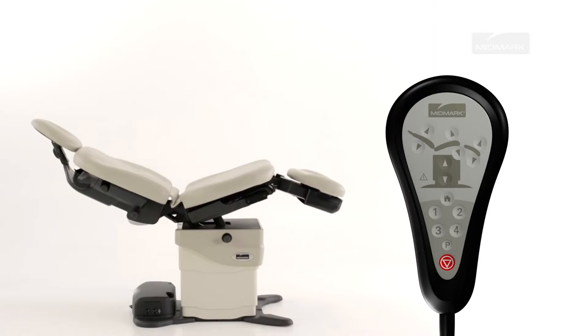move the table to the desired position. Press the program button until you hear a single beep, and press the desired position button until you hear three beeps.